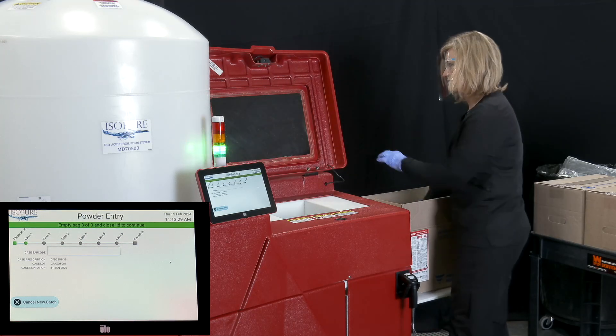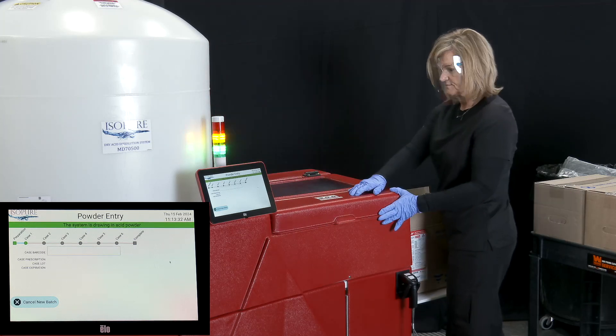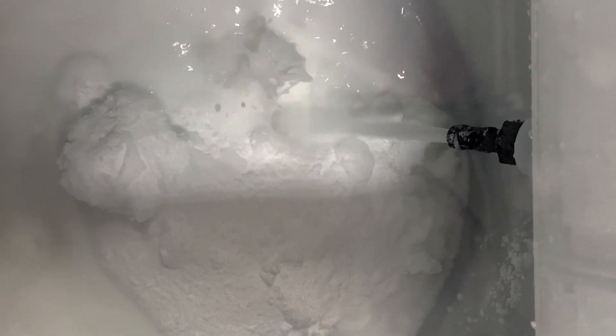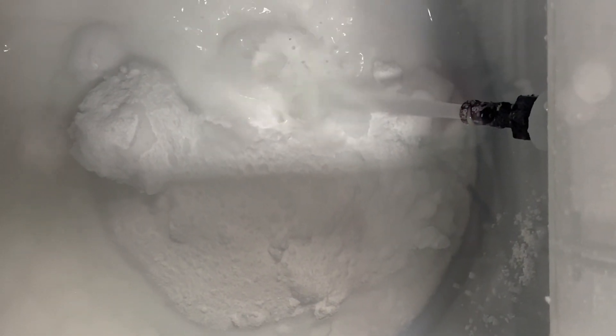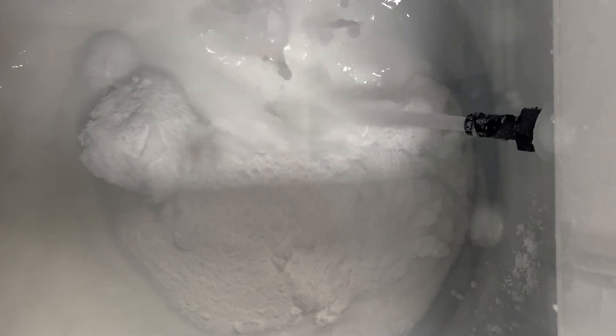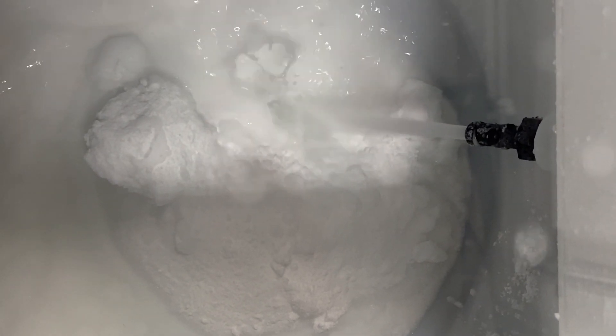Once the system has detected that the contents of the entire first case have been added, the Acumix will automatically spray and flood the inside of the hopper to ensure that all dry acid concentrate has been incorporated.